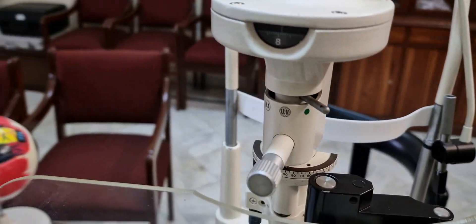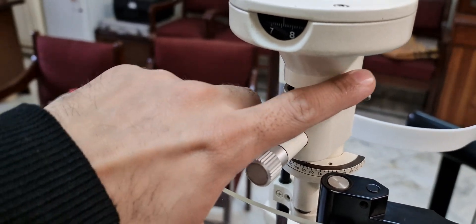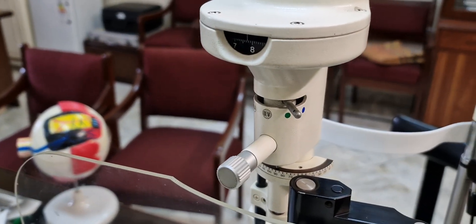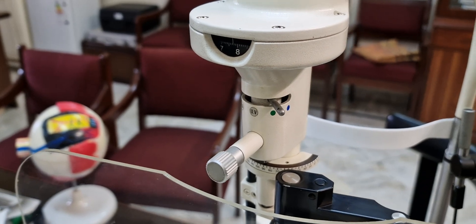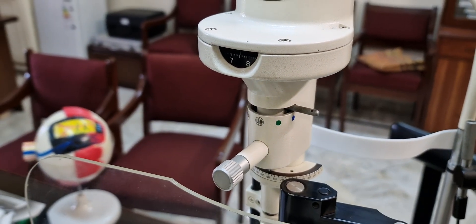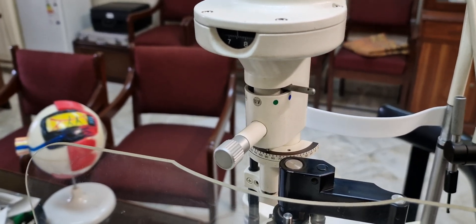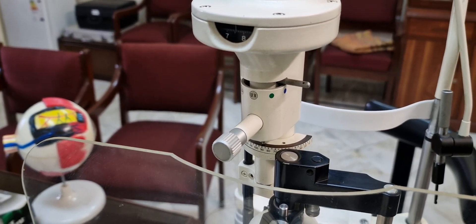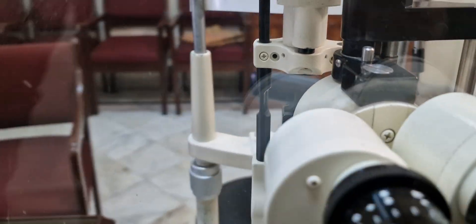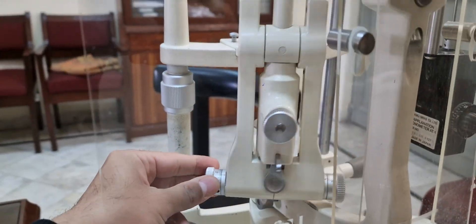Here you can see a filter present. In normal light mode you can see through it clearly. There is a green filter, which is the red-free filter, and a blue, which is the cobalt blue filter. The red-free filter is used to see hemorrhages or blood vascular details. The blue cobalt filter is used to see ulcers by staining with fluorescein dye, so we can see any abrasions or erosions present in the corneal tissue.